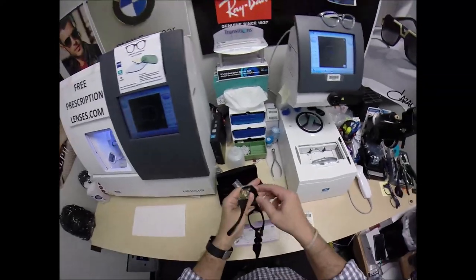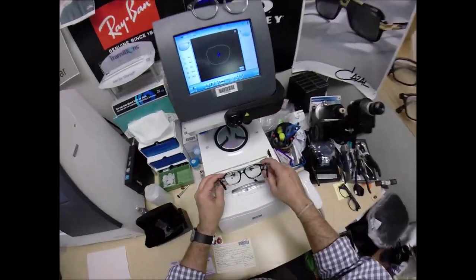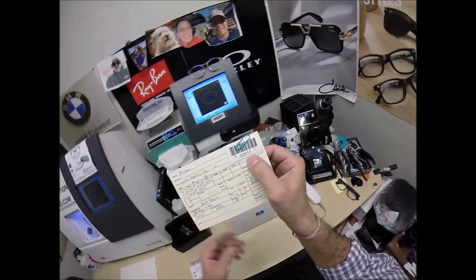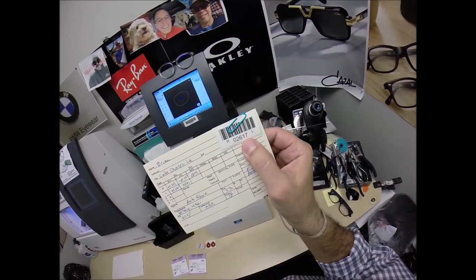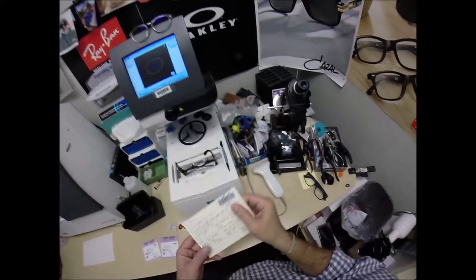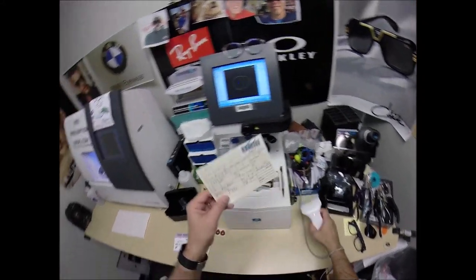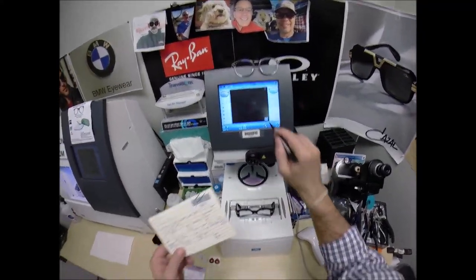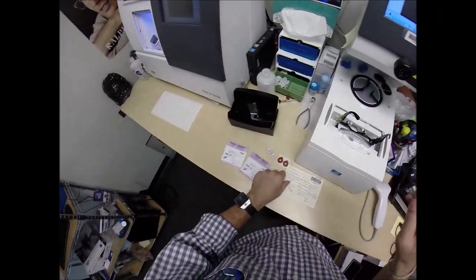Put that in the case because you will receive all the manufacturer's original packaging. I'm going to take your frame and put it into the tracing element of my blocker. But first I want to program this shape into the computer. You are secret agent 2617. So years from now, should you ever want new lenses for this frame, I will have them pulled up and can send them right to your home.